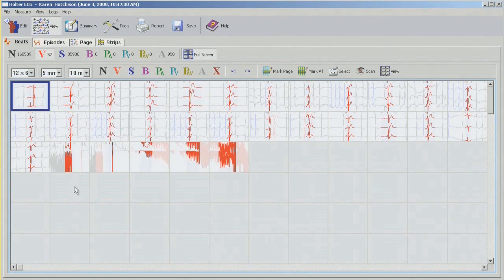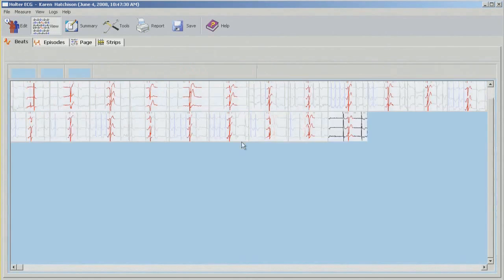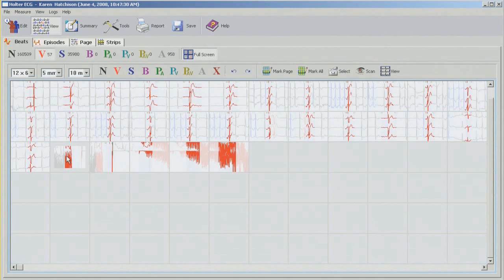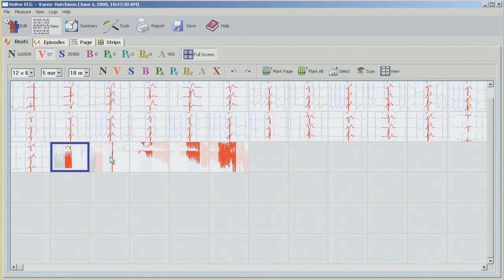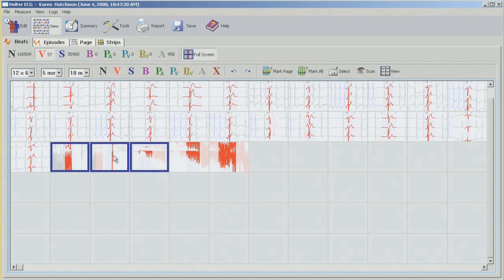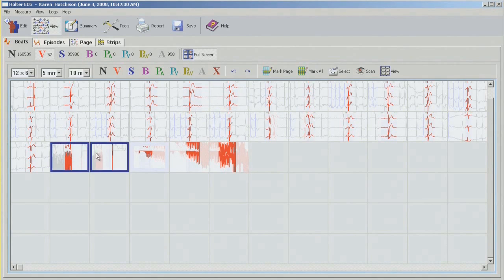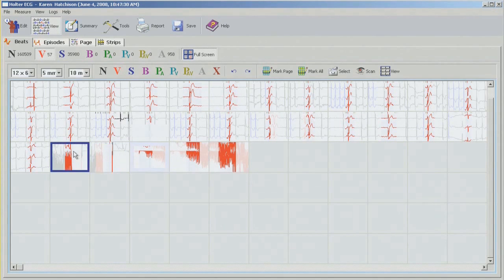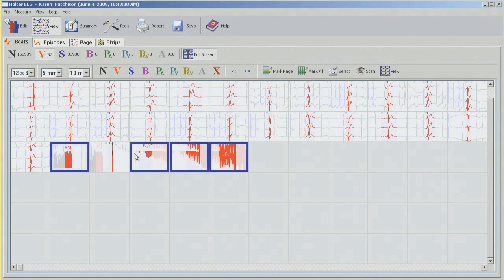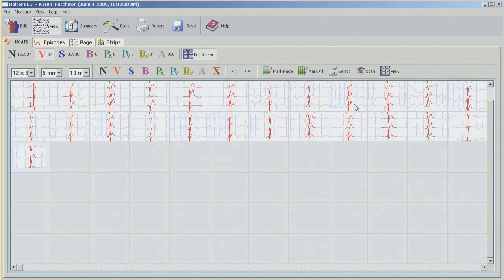So there's some noise beats here. So I'm just going to double check whether there's anything hiding in here. And I think I'm going to noise the whole thing. So in order to do that, I can click on and tag each single one of those. Or I can untag it with a right click. Again, click and drag the mouse over. So this allows you to go from left to right, right to left. But it's very flexible. So once I have all the noise beats tagged, I'm just going to change them to artifact.